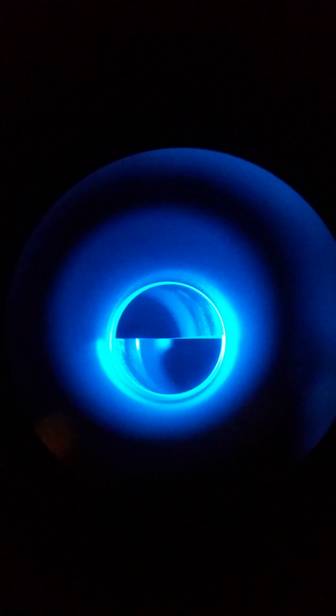Sometimes you'll get to a slit lamp and it'll be crooked, and you just have to turn this little tip. We'll get it on the blue and turn it up.